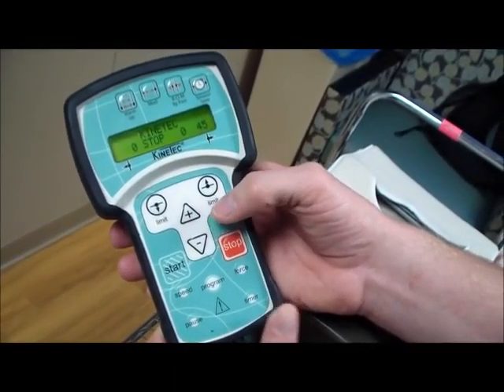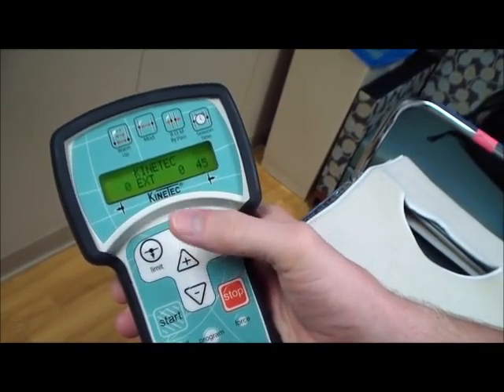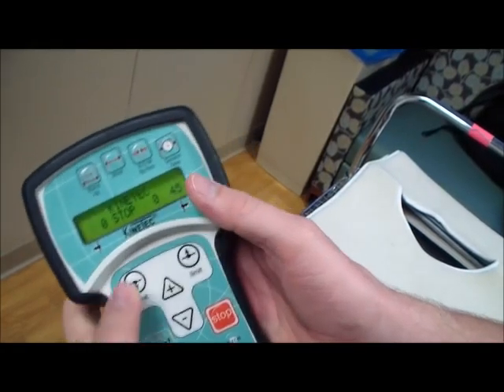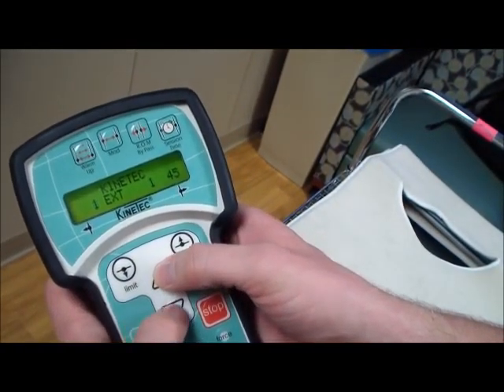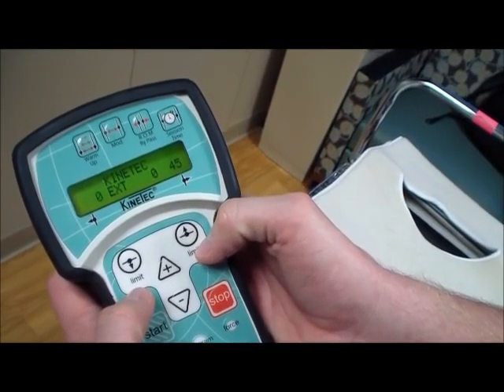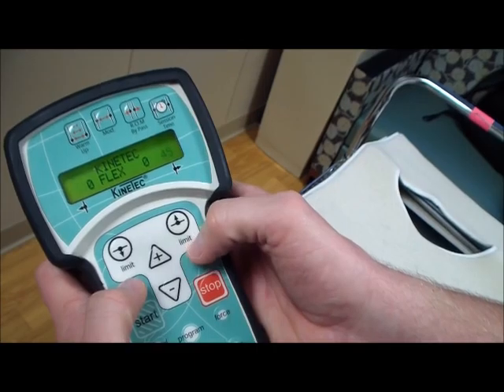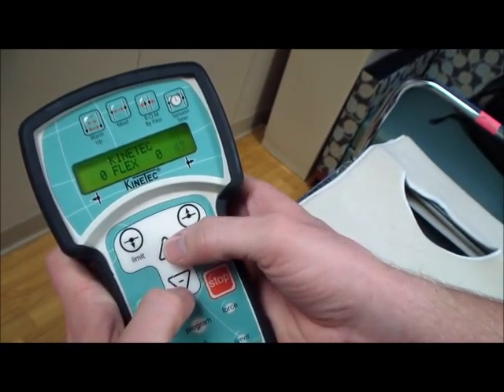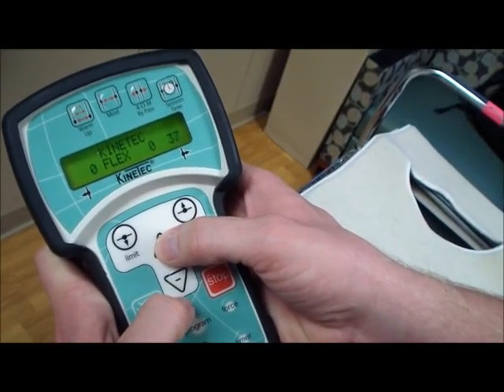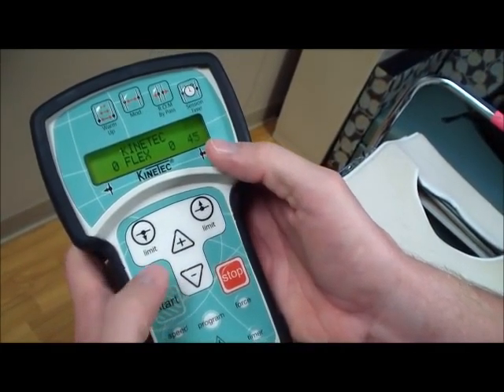So when you're adjusting how straight the knee is, you're just going to click on the button once. You don't need to hold it, just press it once, and it's going to start to flash. And then you want to either adjust it up or down depending on what the settings need to be. If you want to adjust the bending, you click the other one, and you'll see 45 flashing. You can either adjust it down or adjust it up based on the physician requirements.